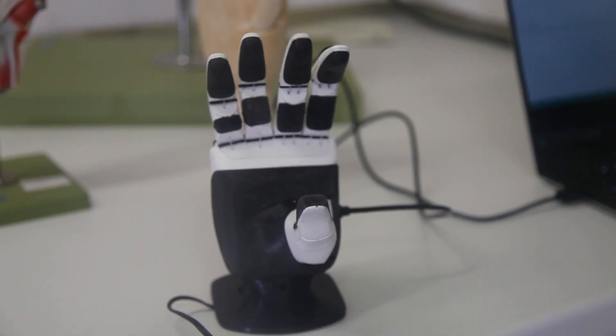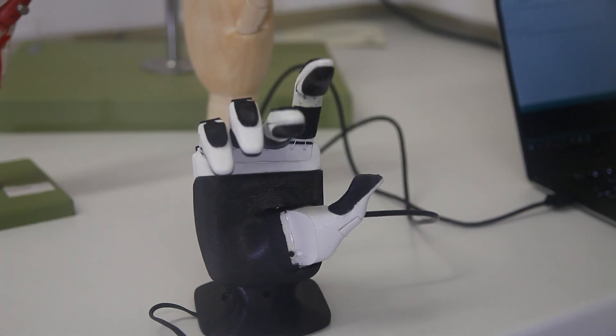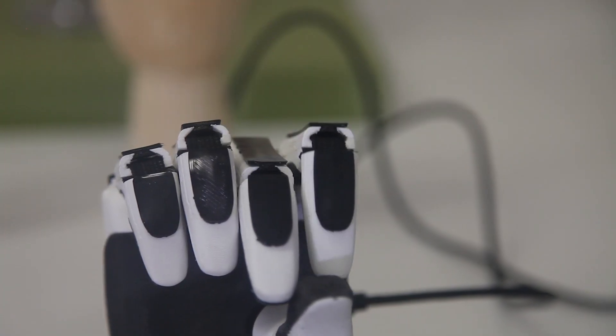We use our hands for so many things, not just performing the tasks of everyday living but communicating and expressing emotion too. The loss of your hand can mean a real loss of independence and identity.